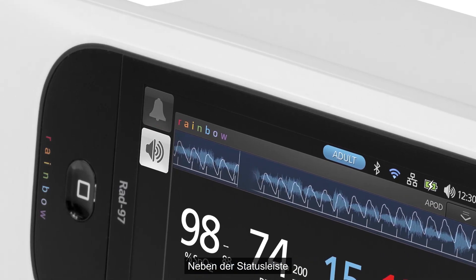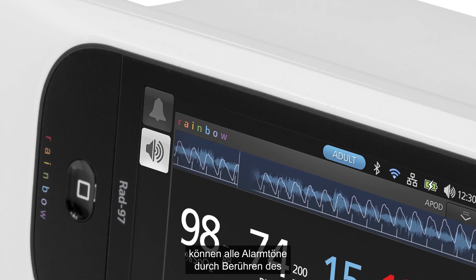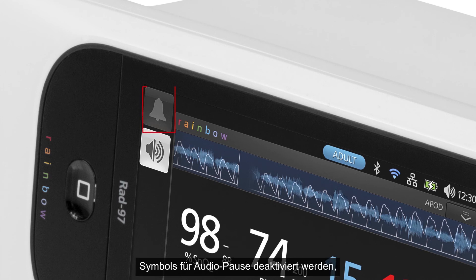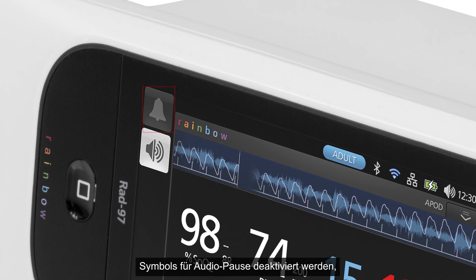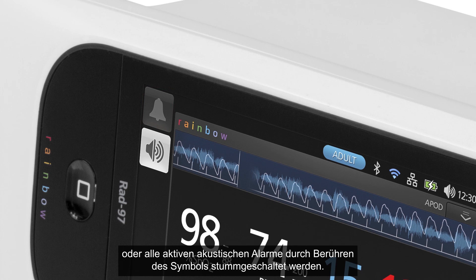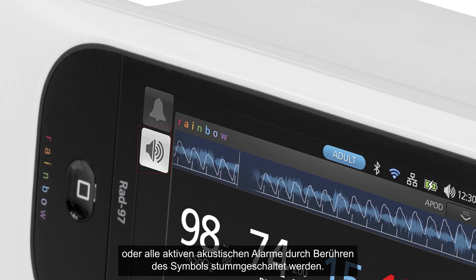Adjacent to the status bar, clinicians can temporarily suspend all audible alarms by selecting the audio pause icon, or mute all active audible alarms by selecting the alarm silence icon.